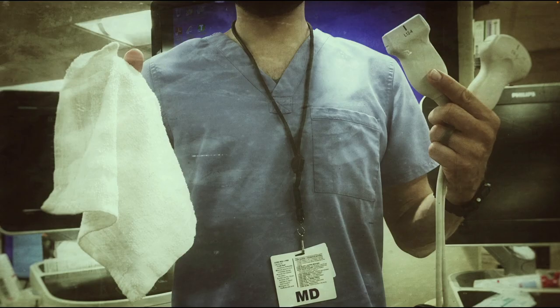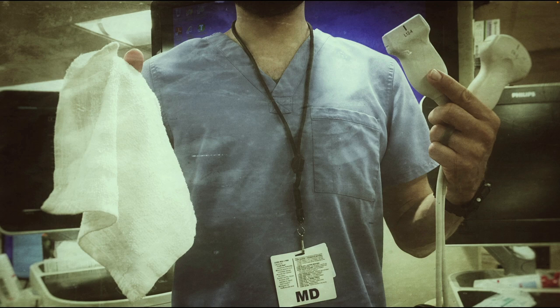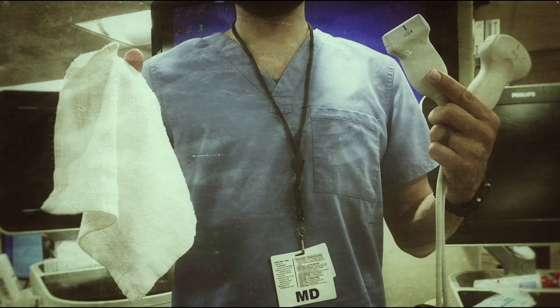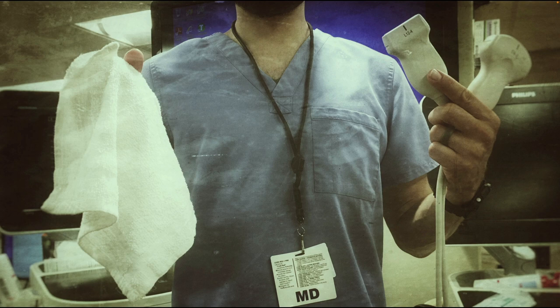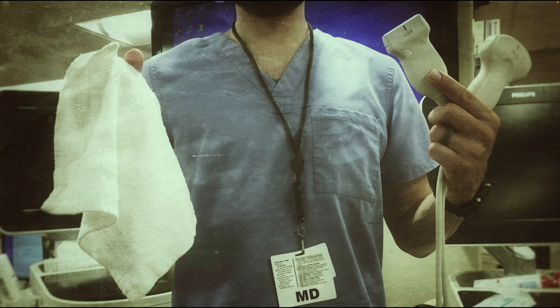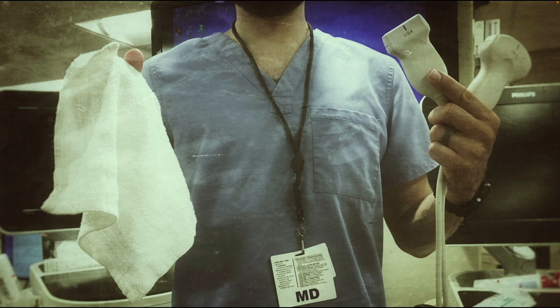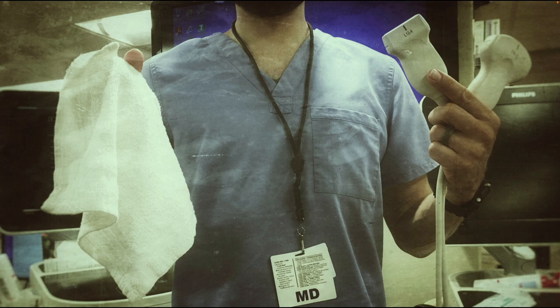Let's talk a little bit about equipment. The probes you're going to want to use are the linear or the curvilinear transducer - both work well. Most of the time I'm actually going to be using the curvilinear transducer because it gives me a wider window. The lower frequency means lower resolution, but it doesn't matter all that much for tracheal ultrasound because really what you're doing is looking for movement. I will sacrifice some image resolution for a wider field of view, especially in patients that are a little more on the fluffy side.